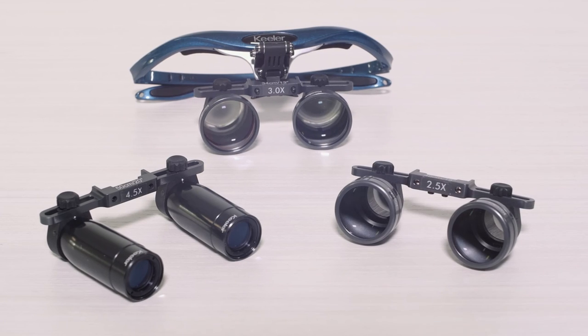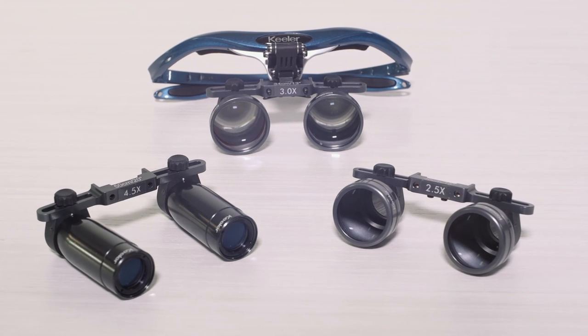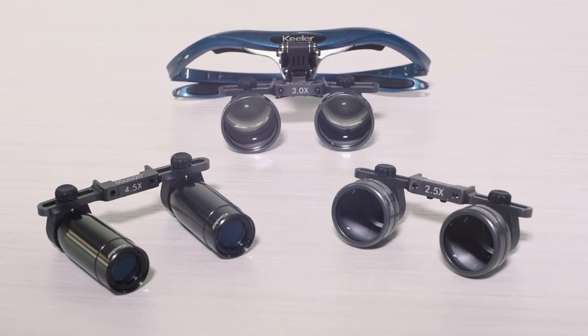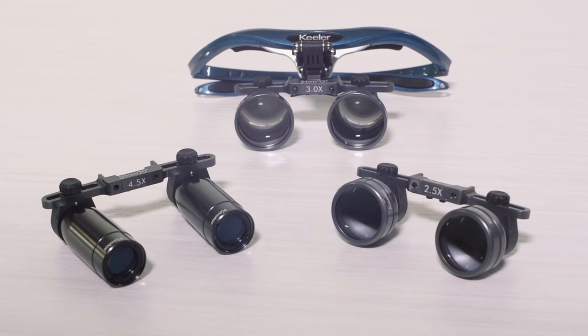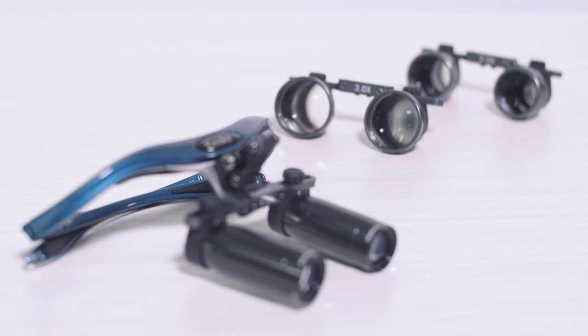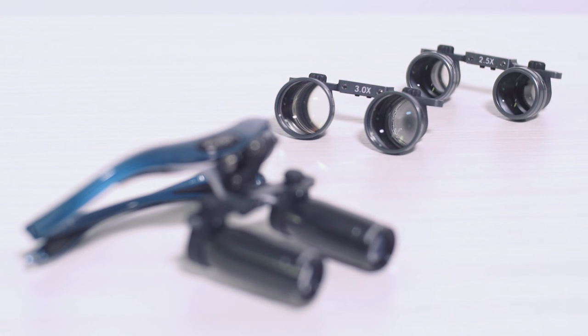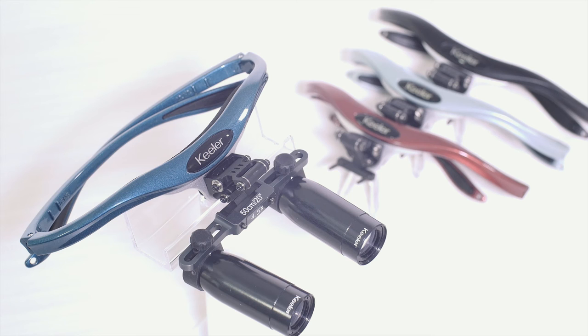Keeler offers a comprehensive line of loops offering enhanced surgical field of view, comfort, and maximum depth of field in either Galilean or prismatic formats. You have a choice of four working distances: 13, 16, 18, and 20 inches.